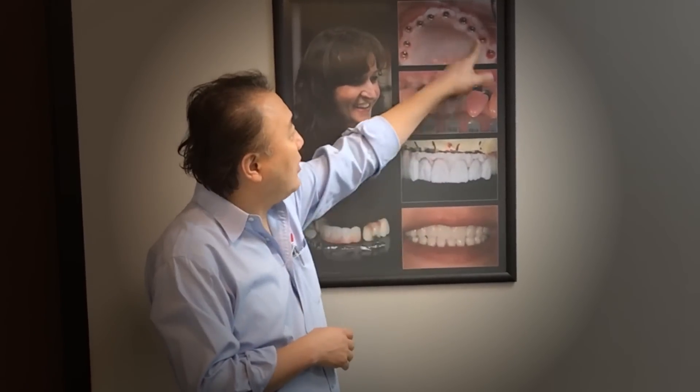As you can see, this is my patient. We finished a long time ago with this big implant case, which is Dr. Joe Crusoe, a prosthodontist in Chicago. It's really good work. We finished her smile. But this new case is beginning a new journey to get to the final work. Do not confuse — that finished case was done more than four years ago. This new one we just received today.